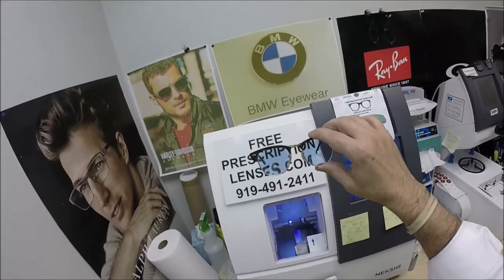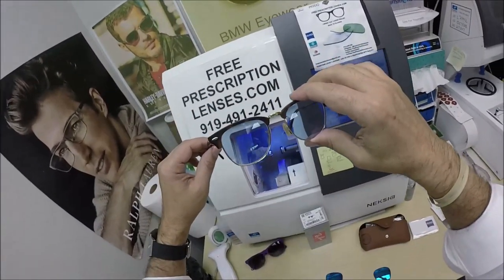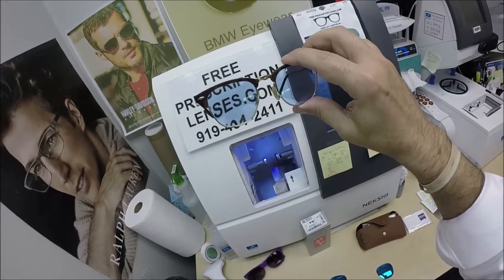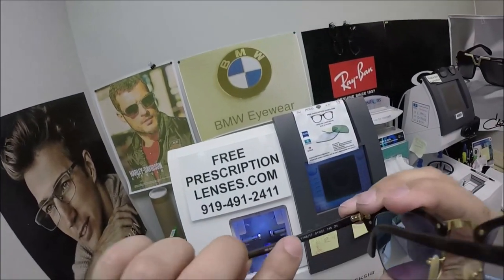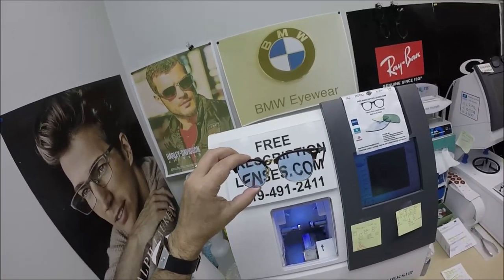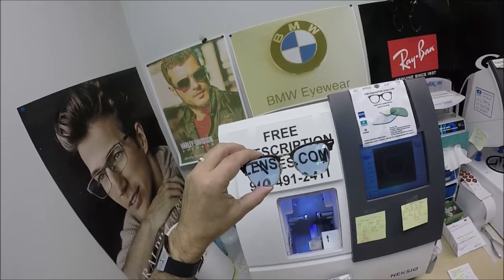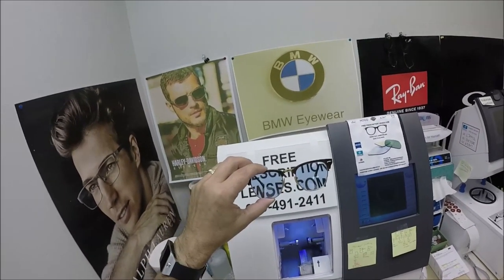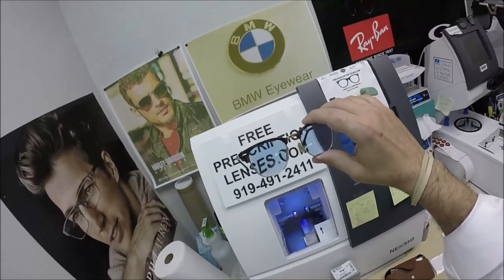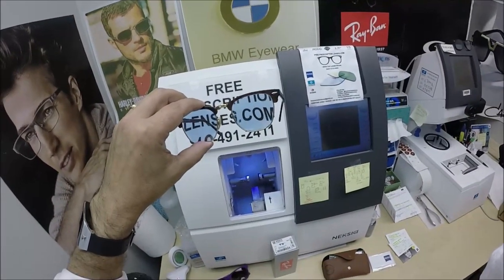Eric, in Flower Mound, Texas — I love the name of that. Thank you so much for the purchase of your Ray-Ban 3016 Clubmasters, size 51, color 1145, with your Zeiss Light D digital free-form progressive lenses, 167 high-index material, with the Photofusion blue, the 30% Johnny Depp blue tint, and the white flash mirror. Hopefully everyone else has got a chance to see how I bring that loving feeling back to glasses. Thank you.